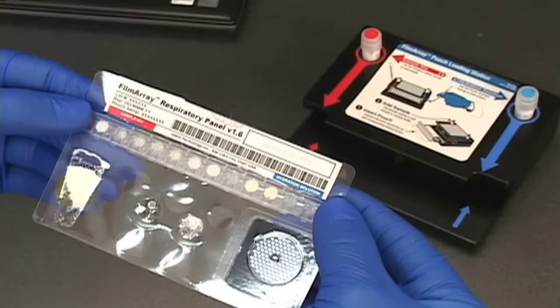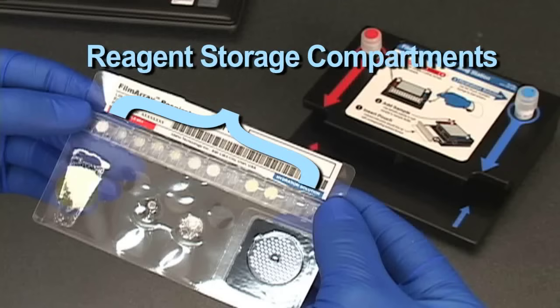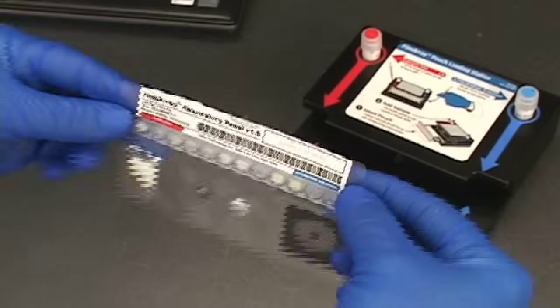Starting a FilmArray run is easy. All of the reagents required to test a sample are preloaded and freeze-dried into the reagent storage compartments of the FilmArray pouch.